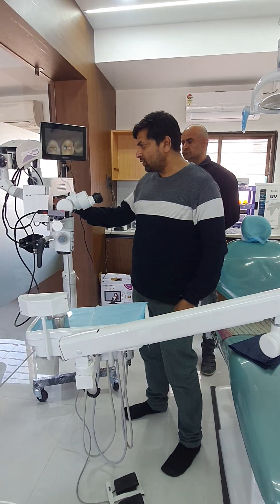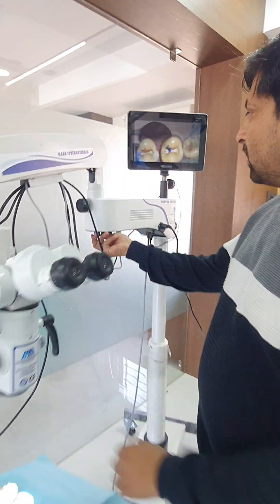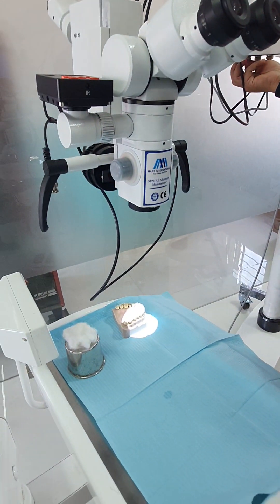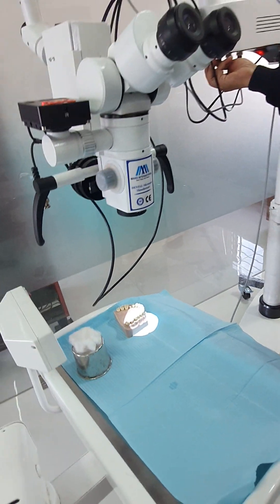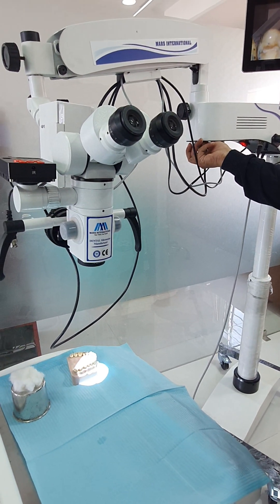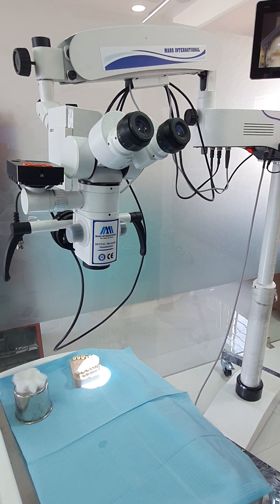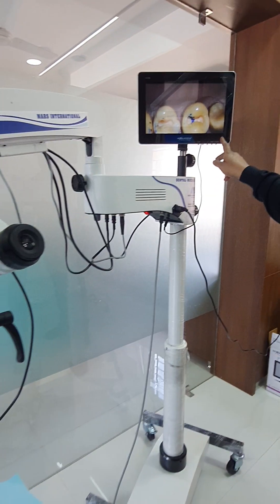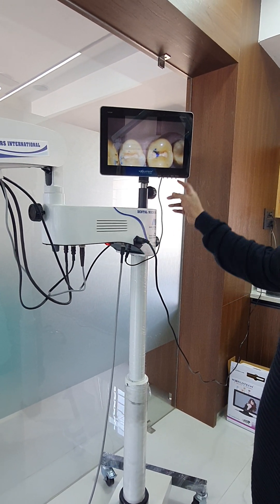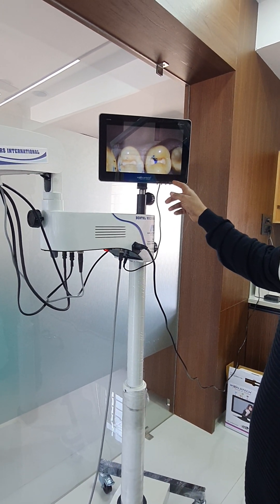This knob is for the light intensity — you can control the intensity with the help of this knob, decreasing and increasing the light intensity. This is for the screen output; it is a 12-watt output which helps to power on the screen.